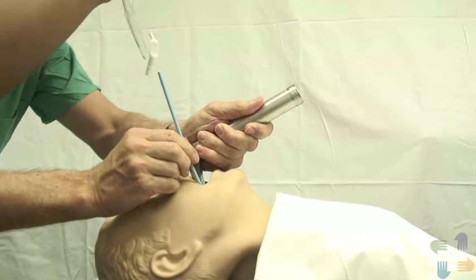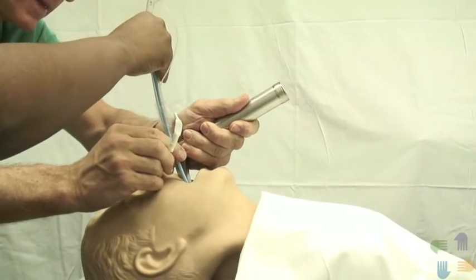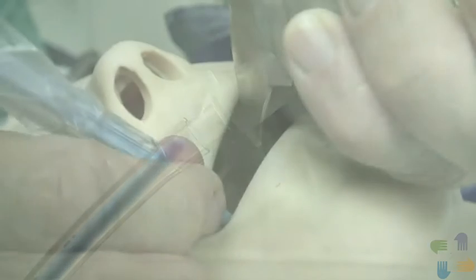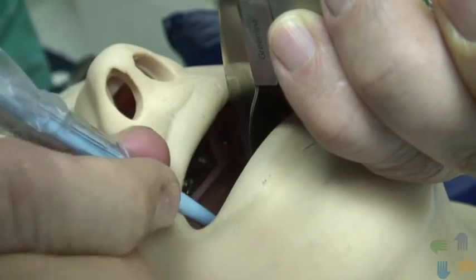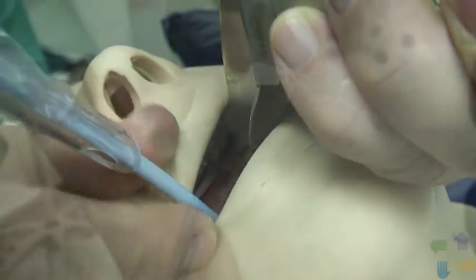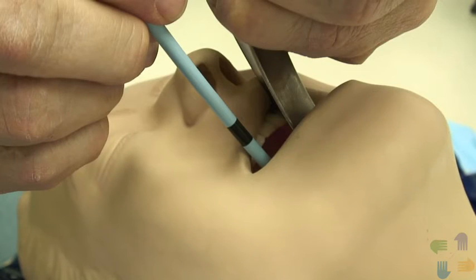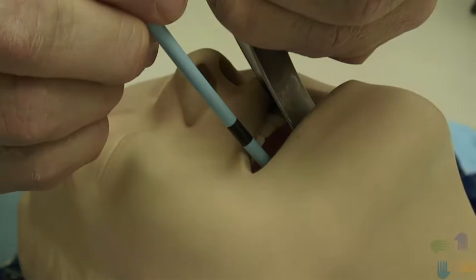If the bougie is passed too deeply, the proximal end will lie within the endotracheal tube, making it impossible to secure the bougie before advancing the endotracheal tube. If this occurs, time is wasted as you pull back the bougie to a point where it protrudes out of the endotracheal tube and can be grasped. This can be avoided by making sure that the bougie is not deeper than the black line, or 23 centimeters as marked off on the bougie.